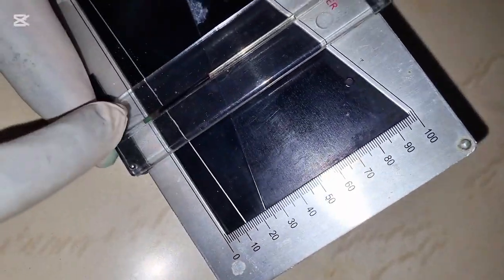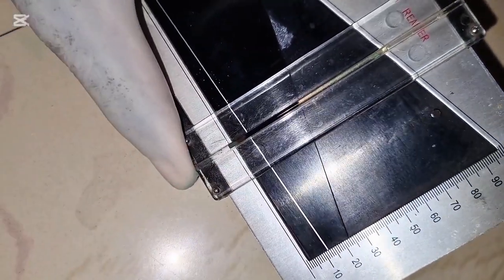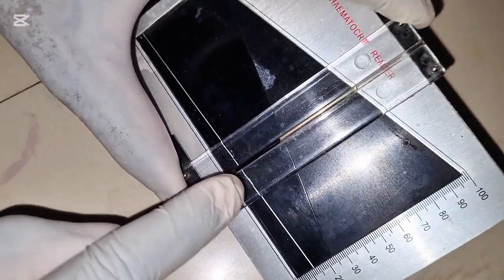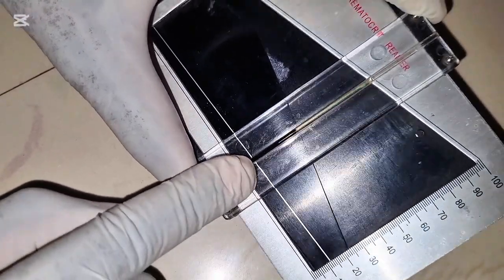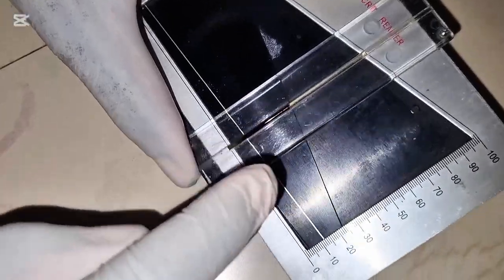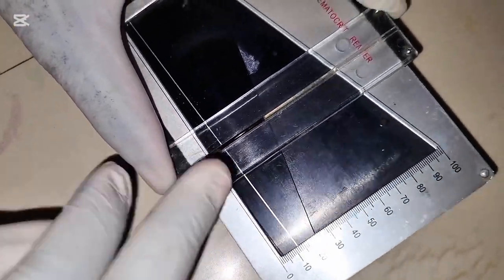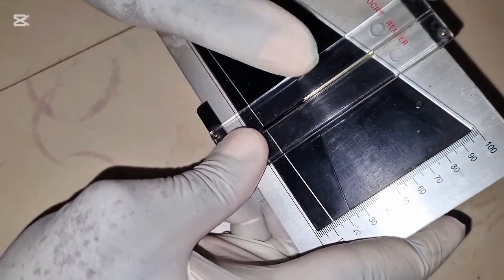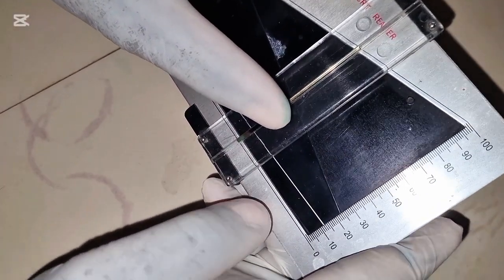So you see, the lower part that has the red blood cell, this is where, note, you are not measuring the part that has the plasticine. You are starting from where the red blood cell started, just before the plasticine. So you make sure that the part that has the red blood cell just before the plasticine is touching the 0 mark.